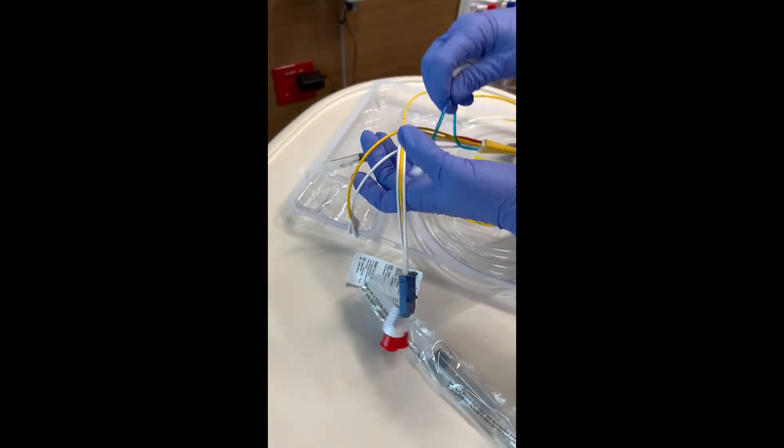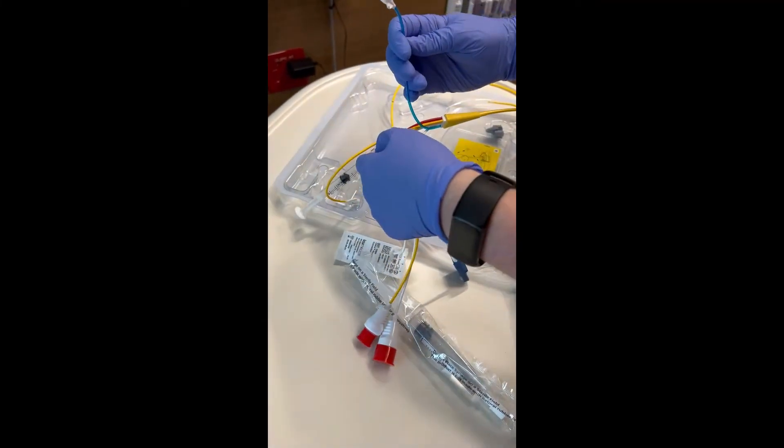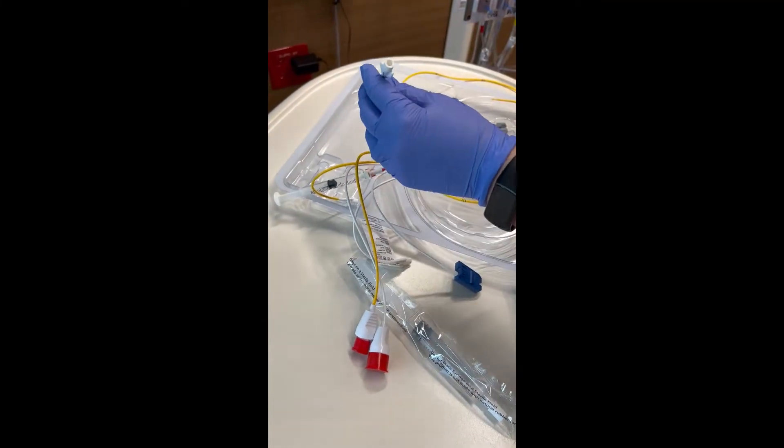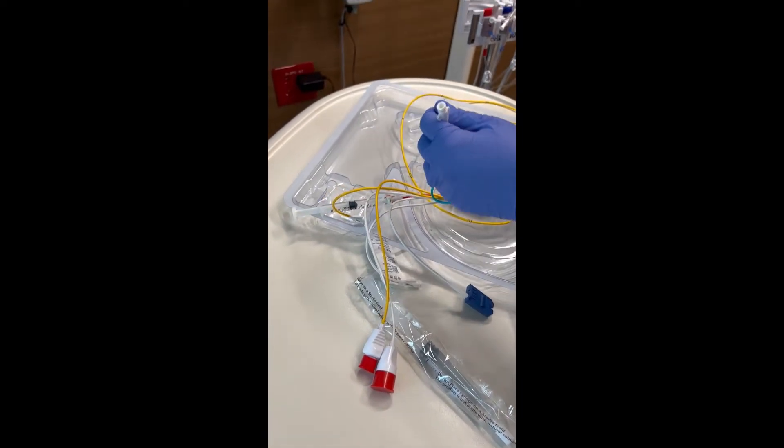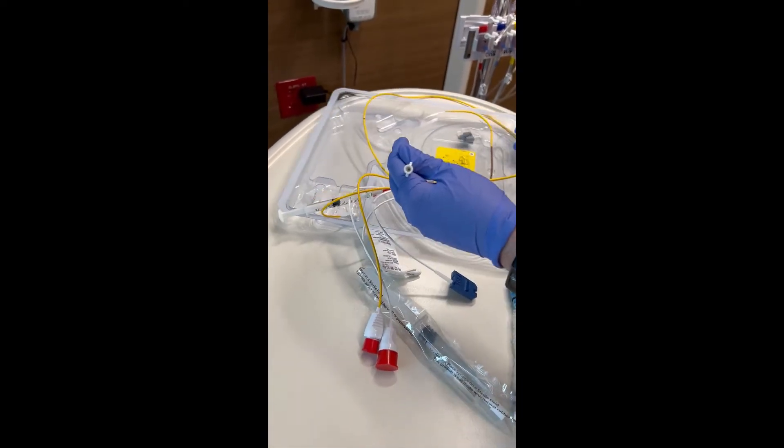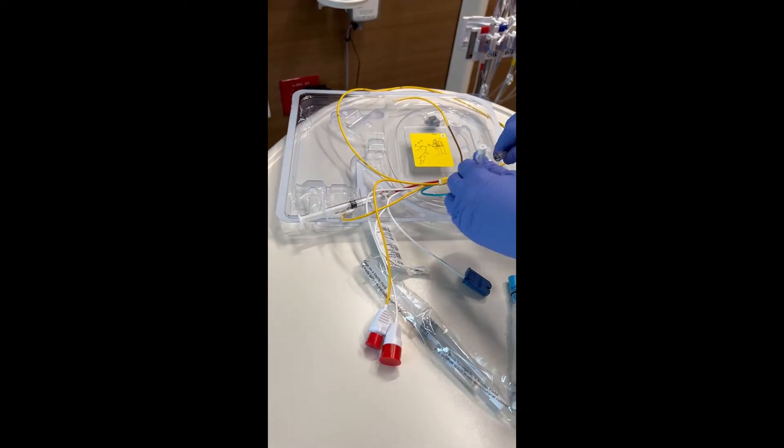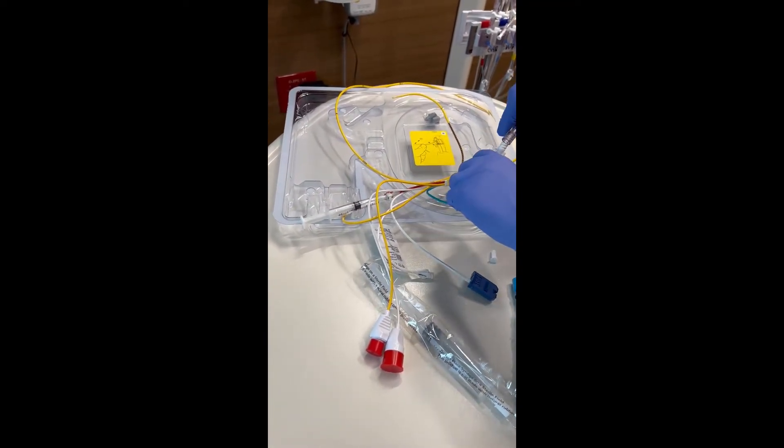What he's going to do is they're going to have you flush the ports. So we're going to hook up our CVP to our pressure line. And again, this is all with a physician on the sterile field. I'm just showing you guys. We're going to hook it up.